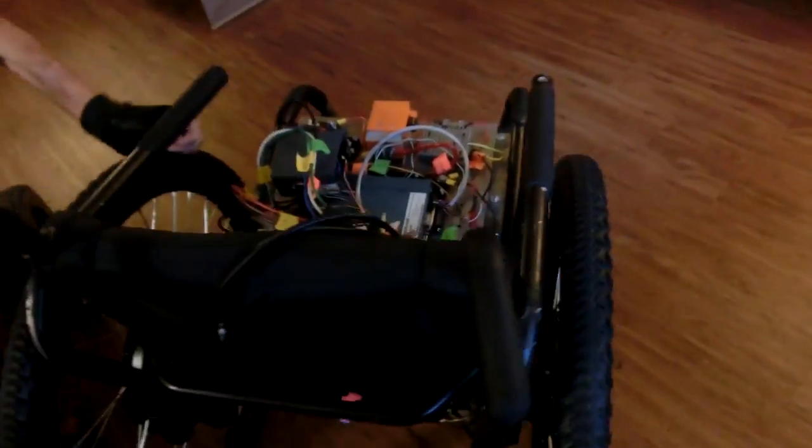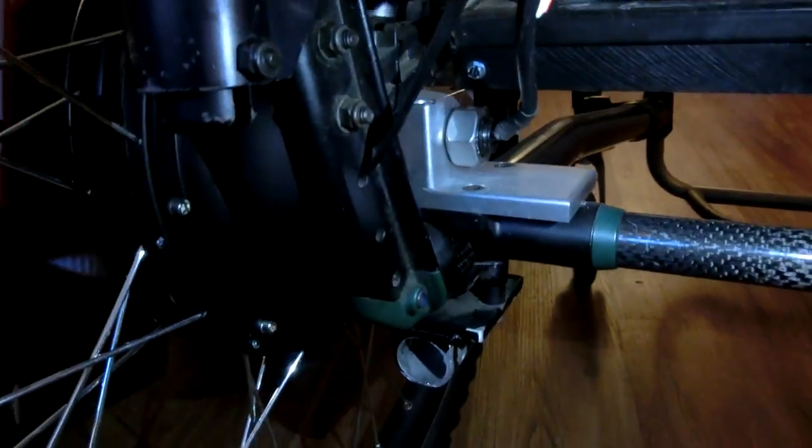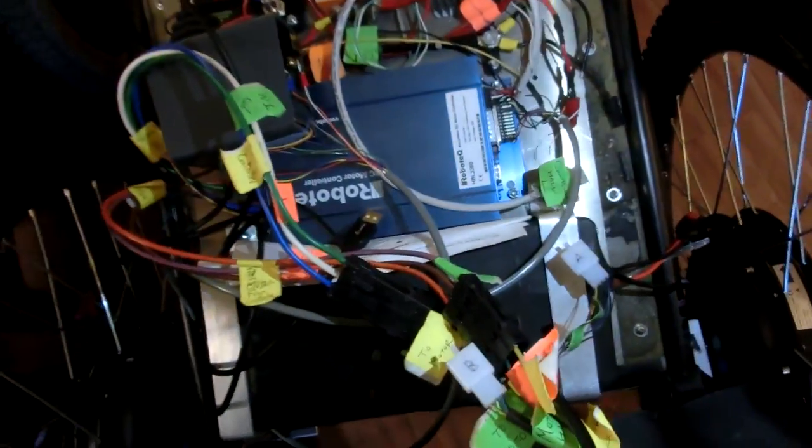Need a wheelie bar for that much power. It does have wheelie bars they're just not attached. So yeah we got some beastly motors on this and we got powering it a 48 volt lithium iron phosphate, a LiFePO4 battery.